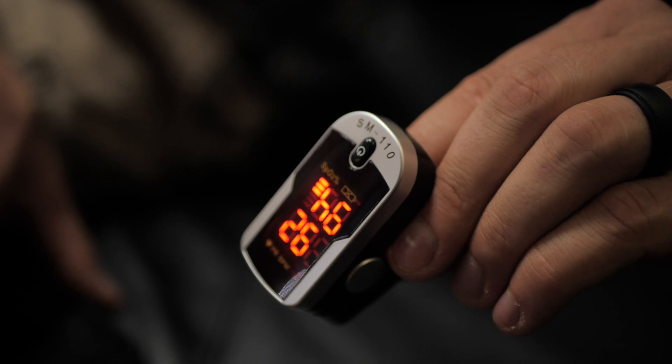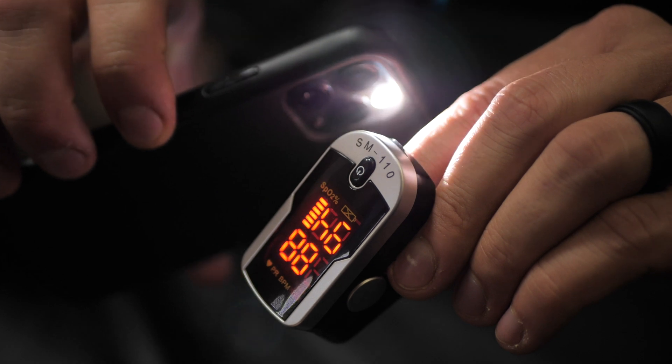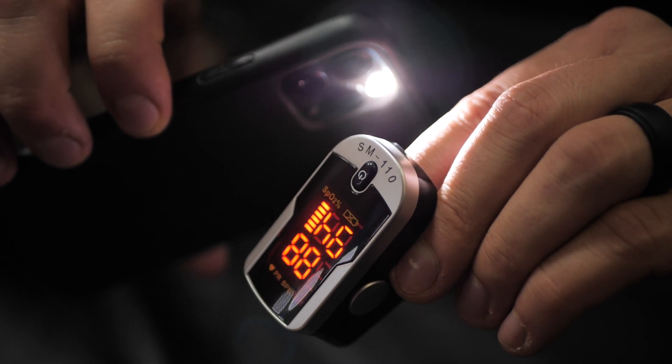The sensor in a pulse ox picks up ambient light and tries to cancel it out for a more accurate reading. But the more ambient light that gets into the sensor — and the less the pulse ox is actually blocking it — the less reliable your reading will be. If there's a lot of ambient light allowed to reach the sensor, your reading is not going to be nearly as accurate.